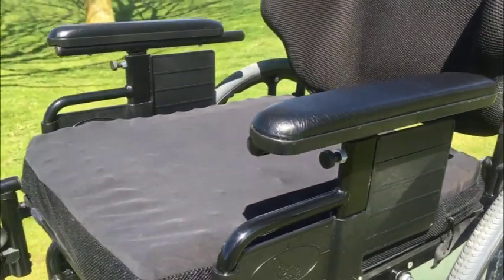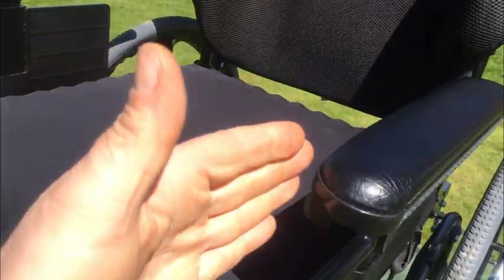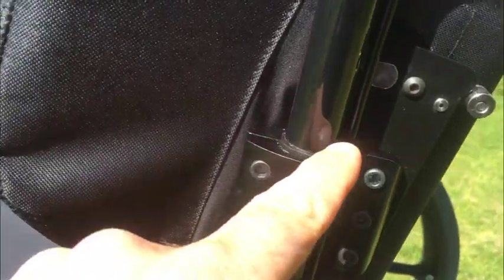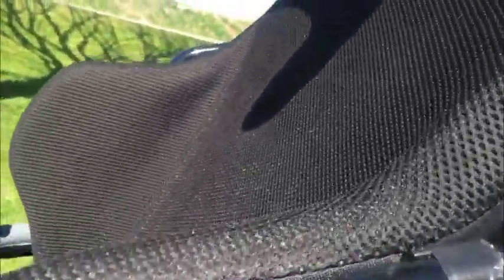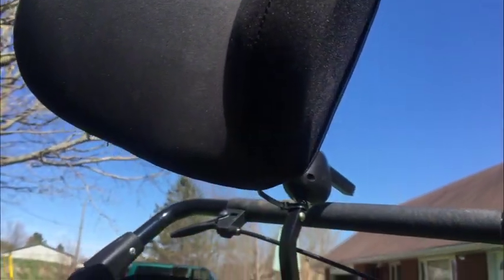This is built for a little wider rider. The internal measurement is 21 inches, and from the front to the back of the platform is 25 inches. When you buy a chair like this, you do have to do some adjustments, but that's very simple — the whole platform can be adjusted, as can the pitch and position of the backrest. The headrest is adjustable as well.